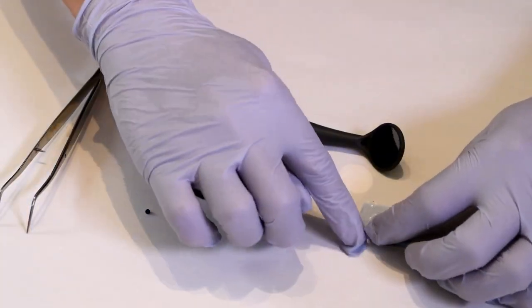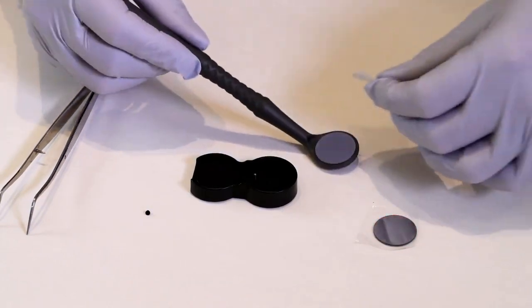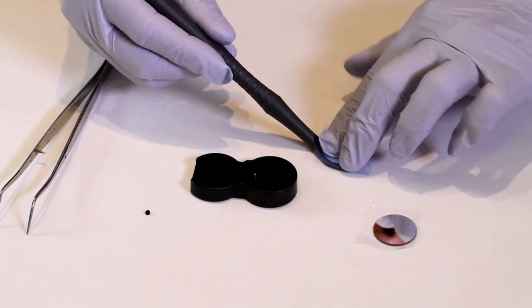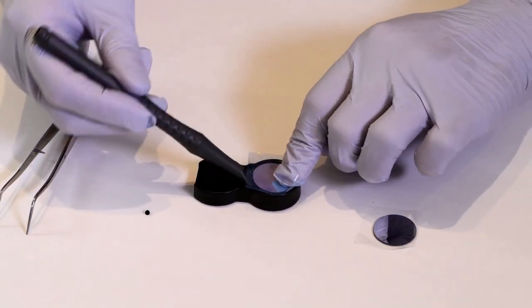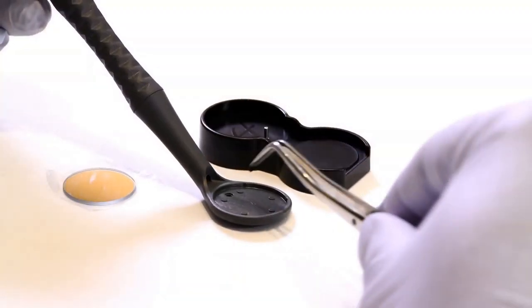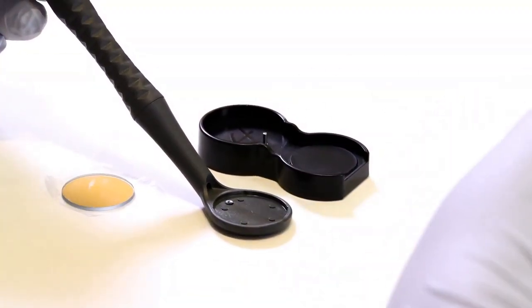It has an easy, one-click mirror replacement system, making it more eco-friendly. Simply press the back of the mirror directly onto the silver mirror key to release the old mirror and plug. Then insert a new plug and lens.